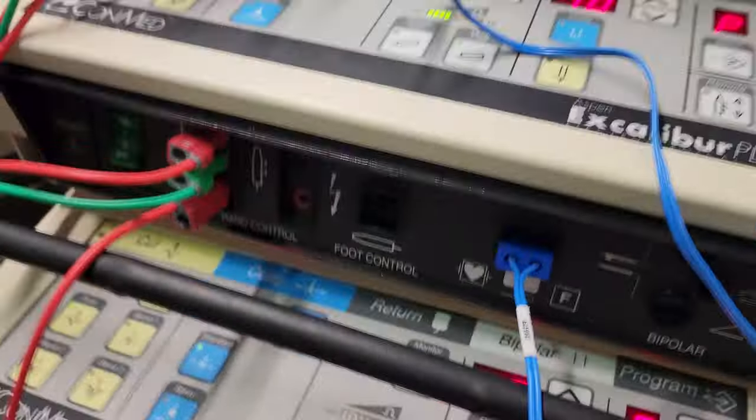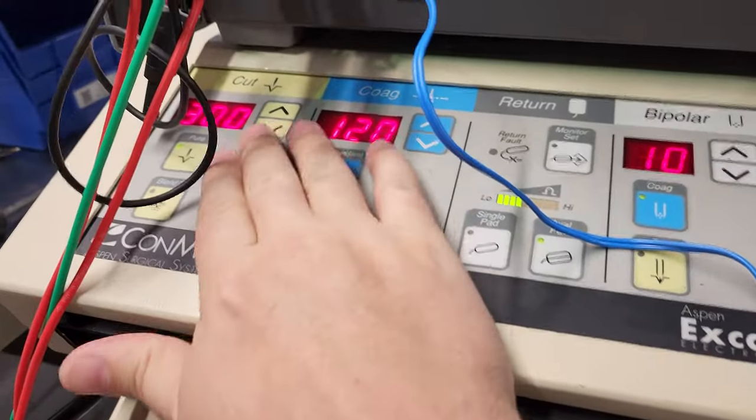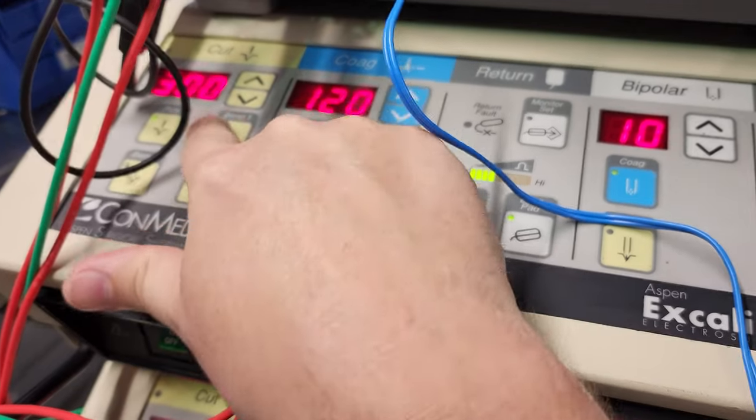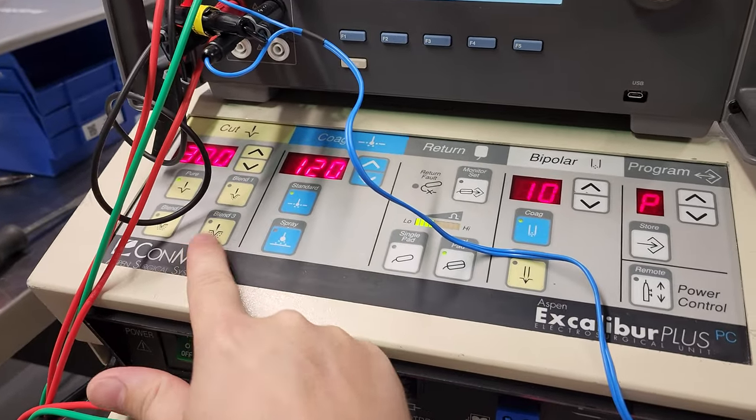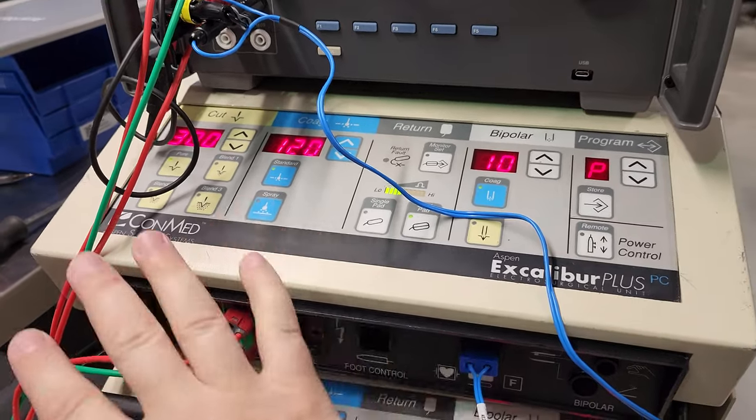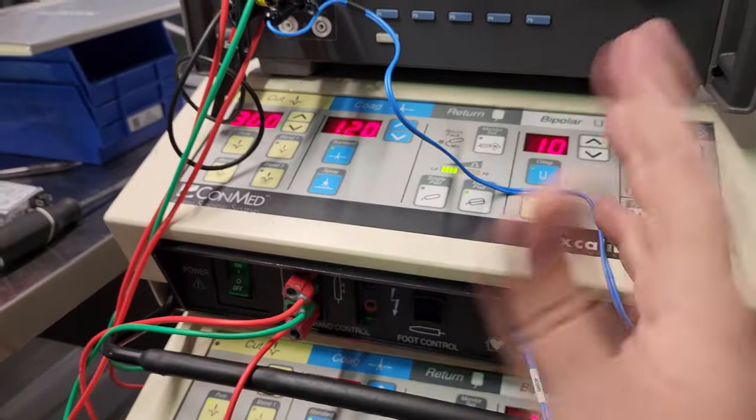And you can see it starts immediately at its last known setting, which is 300 and 120, maxed out. I didn't touch it. I just booted it up this morning.